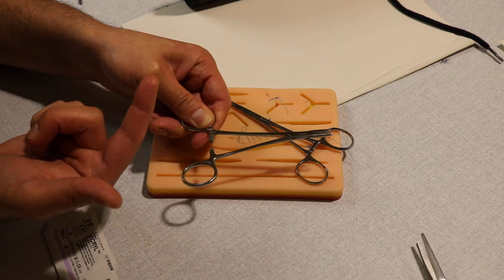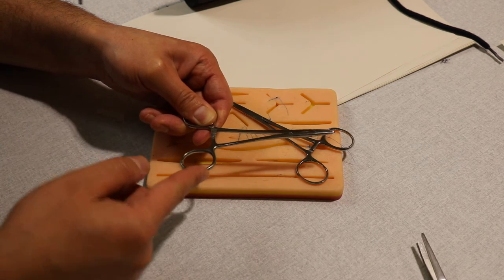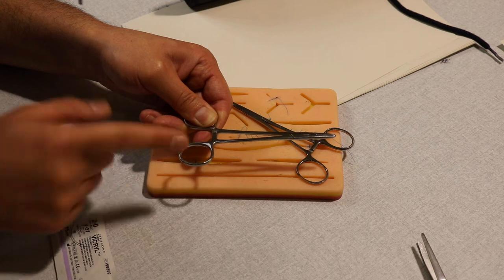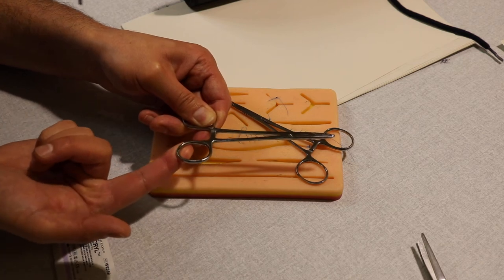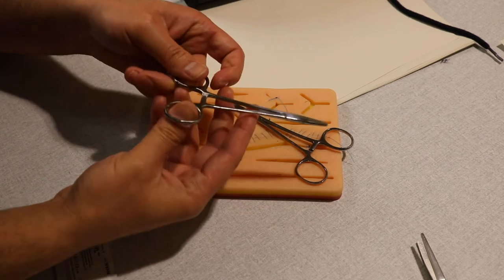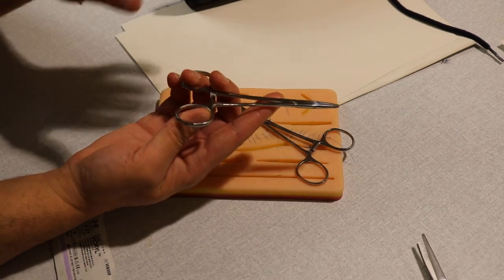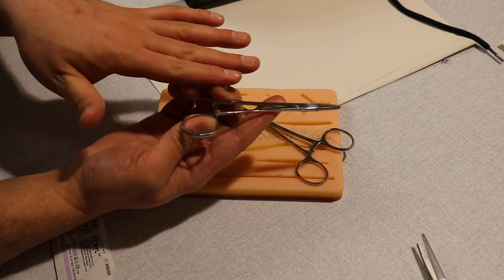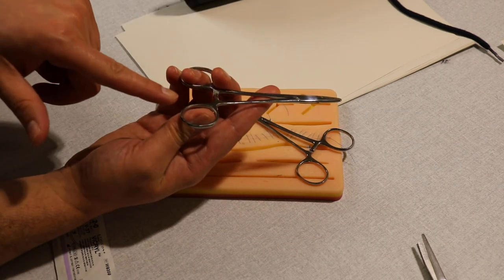You can close it like that, but the only way of opening it is to push this up and it will open by itself. How can you do that? By this hold: you stabilize this limb with these two fingers, and that's why I'm saying just put the tip of the thumb so you can push this up. It will open very easily.